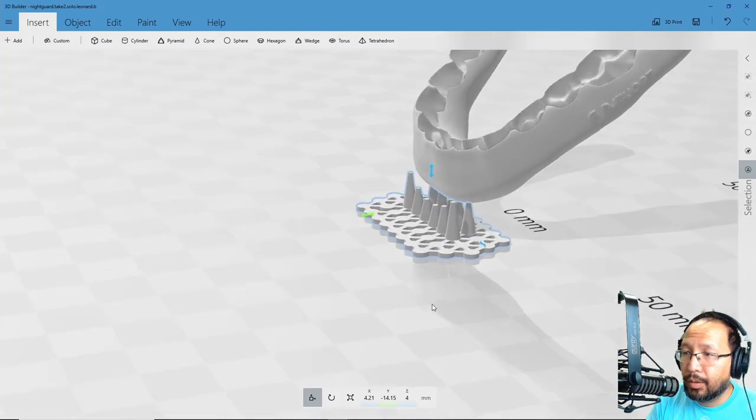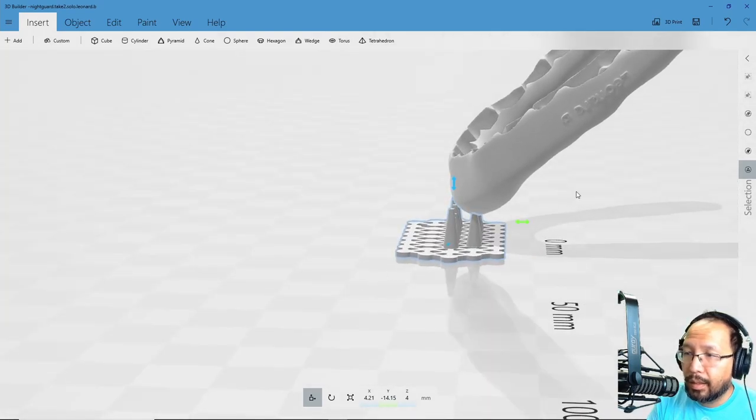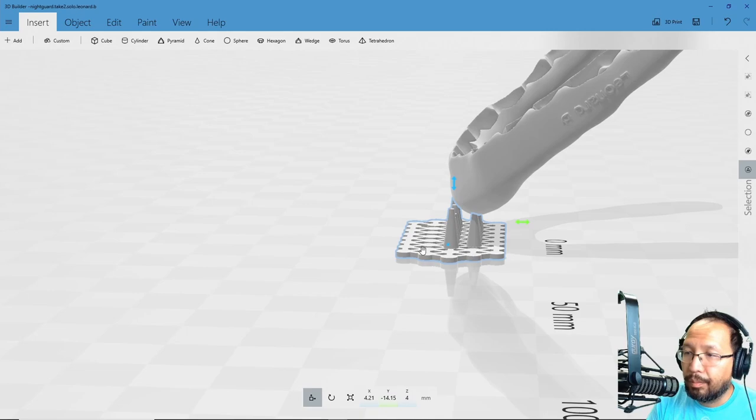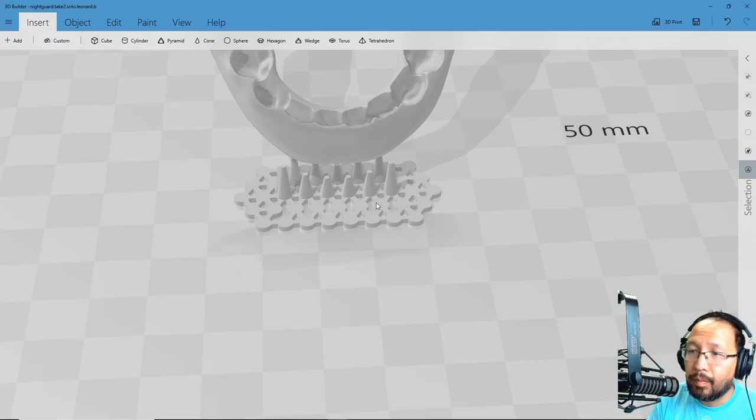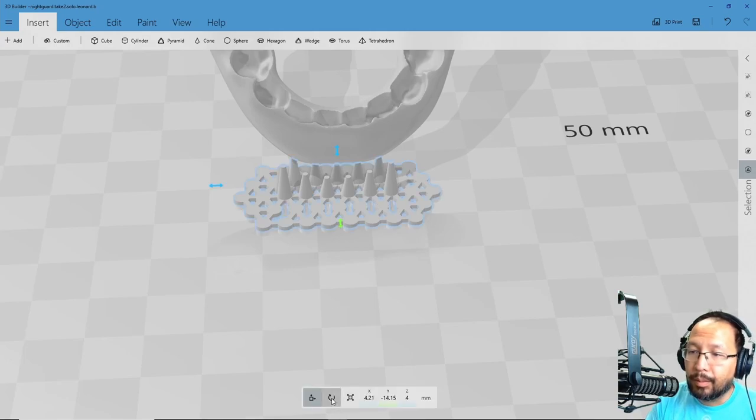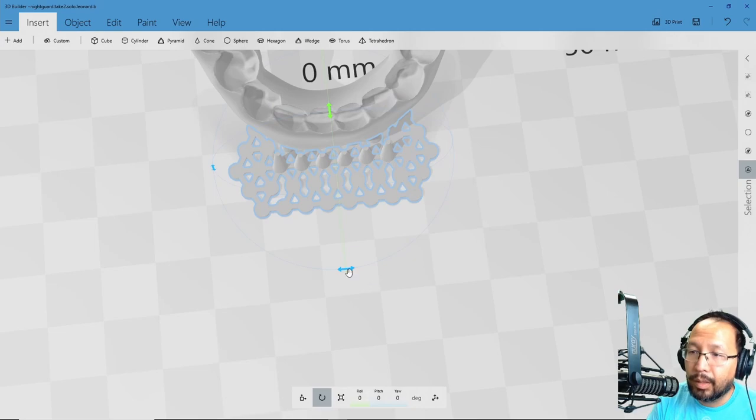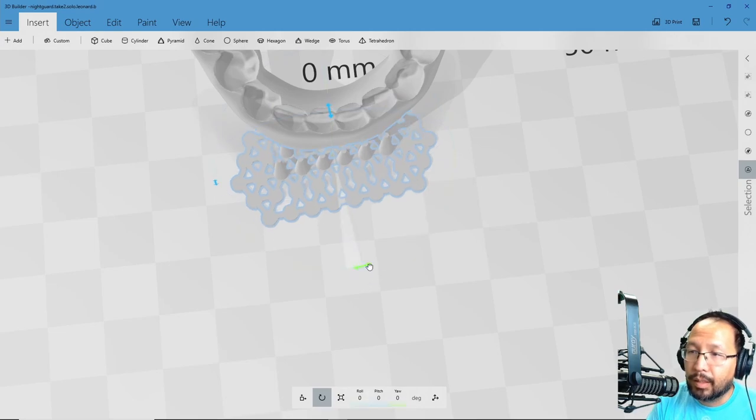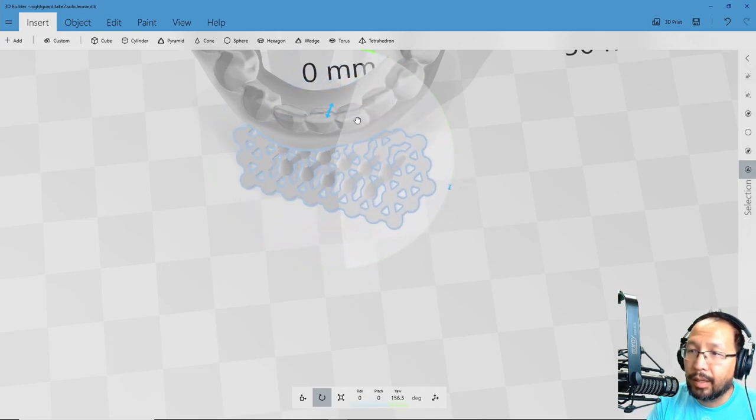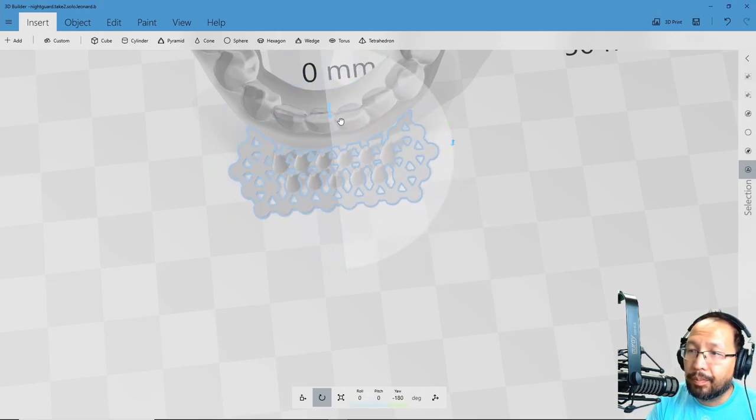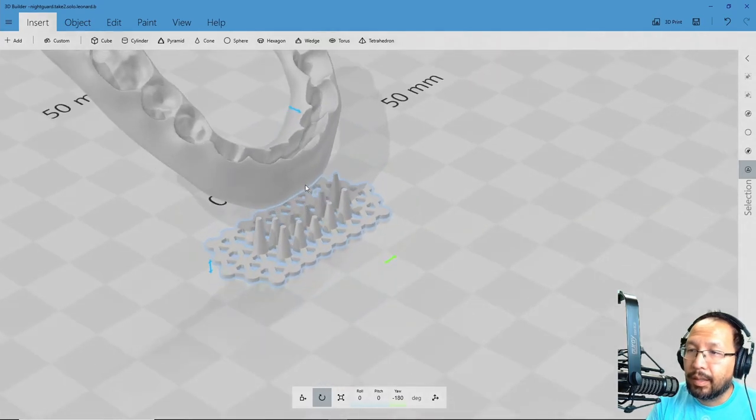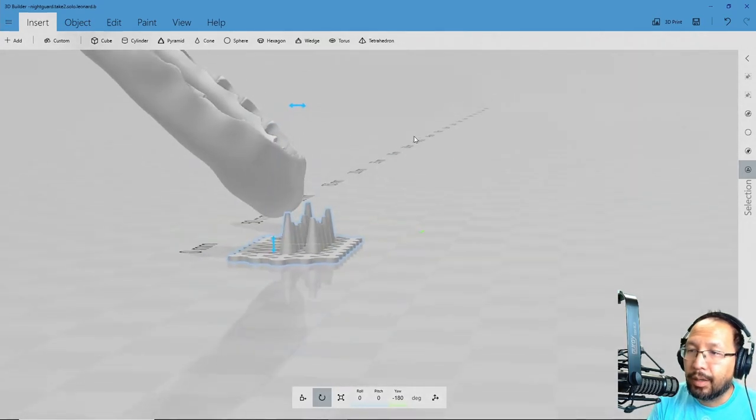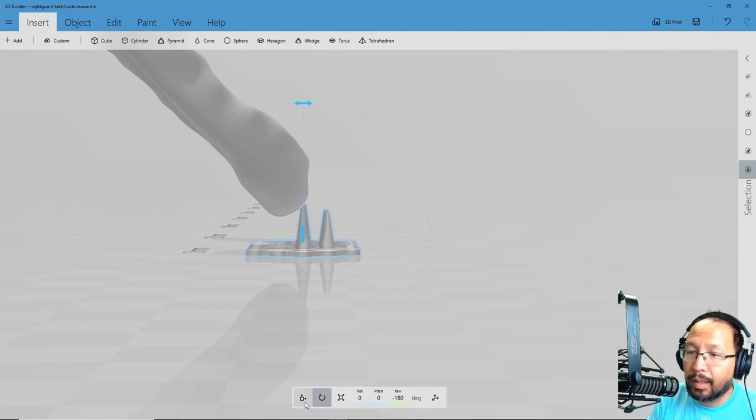You'll notice here that there is more base this way than that way. I probably need to reverse that. So I'm going to go here and click rotate here again. And we're going to go ahead and rotate this along the yaw axis. They're using aircraft aviation language for that.